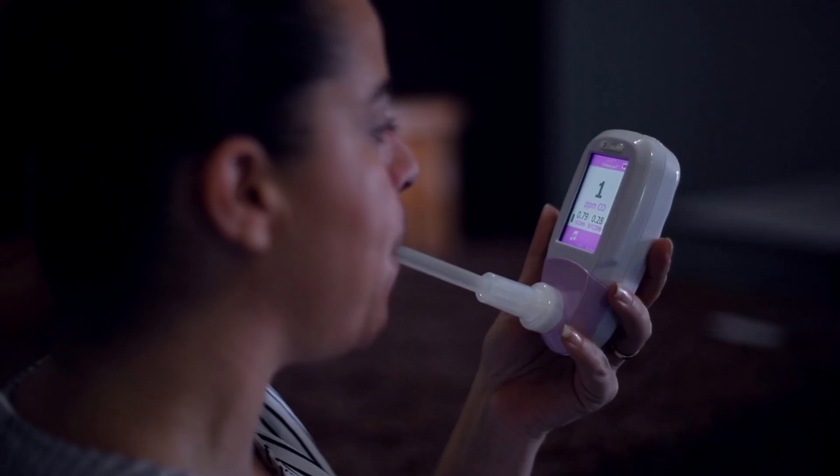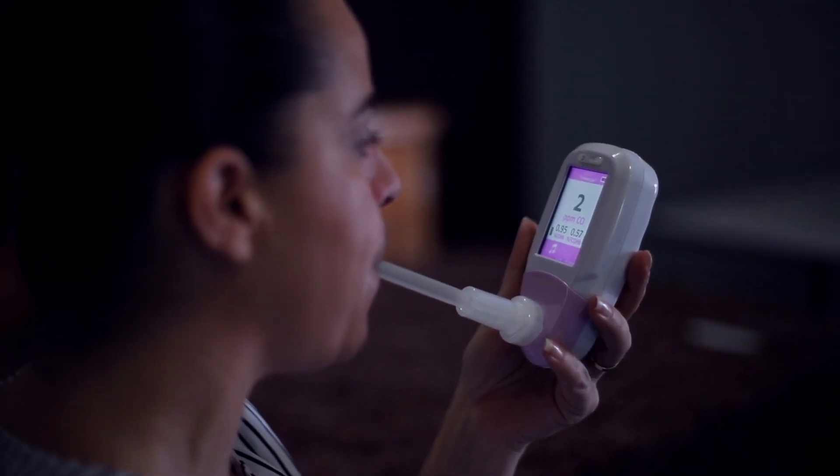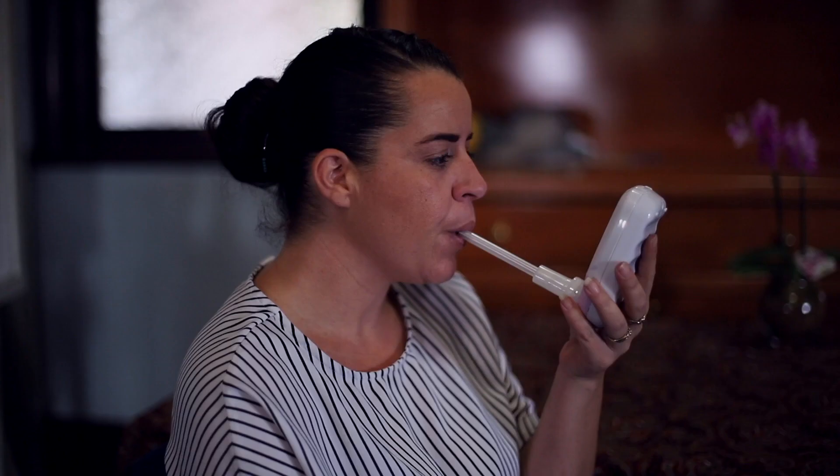After this point, the measurement of carbon monoxide will show on the screen. It will show green, orange, and red lights on the side, as well as a number with a percentage and parts per million. A non-smoker should be reading less than 1.6% carbon monoxide. Anyone exposed to secondhand smoke may read a little bit higher. We're looking for a reading in the green, which confirms that the patient is a non-smoker. The more heavily they smoke, the more carbon monoxide will be in their system, and the higher the percentage shown on the reading.